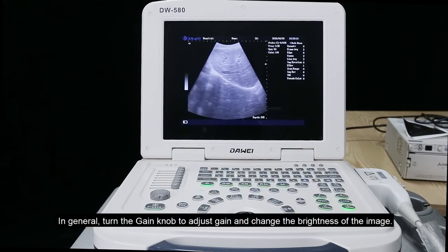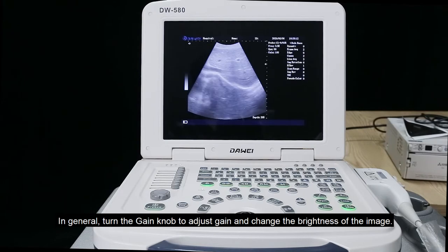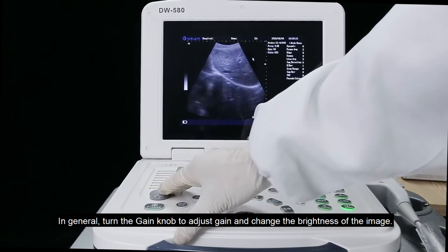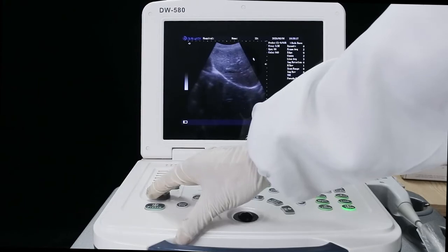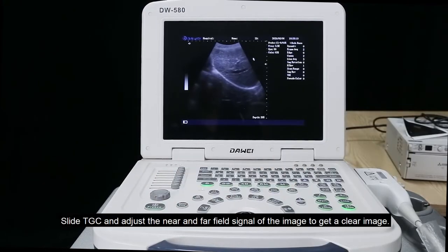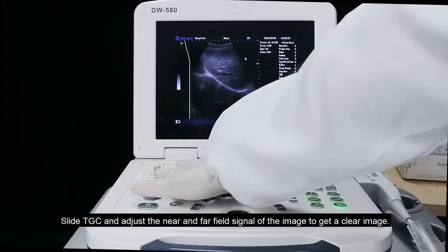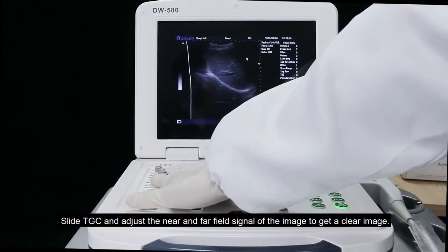In general, turn the gain knob to adjust the gain and change the brightness of the image. Slide TGC and adjust the near and far field signal of the image to get a clear image.